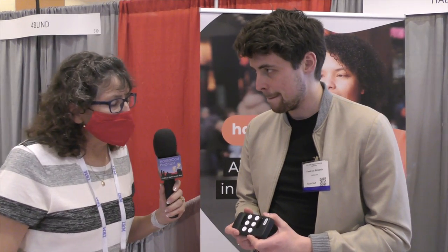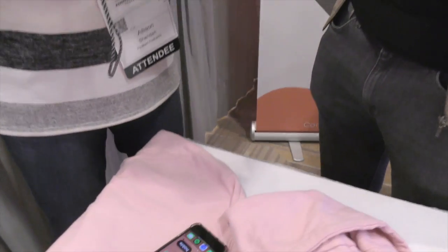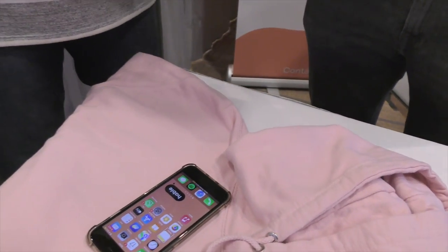So do you want to demonstrate — do you want to do what we did before? You talk with the microphone and I get to hold the controller. I'll give you the Hable. So I'm going to hold the Hable. So right now we're on my home screen on the phone, and we're first going to do basic navigation — going an item forward or backwards.